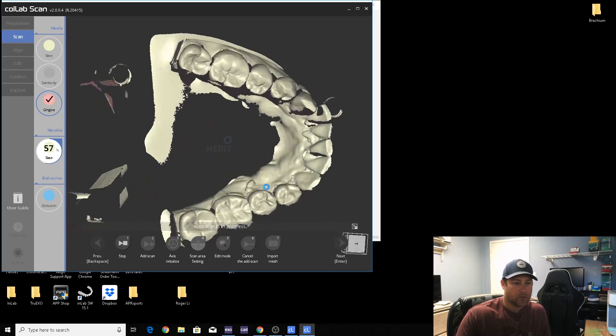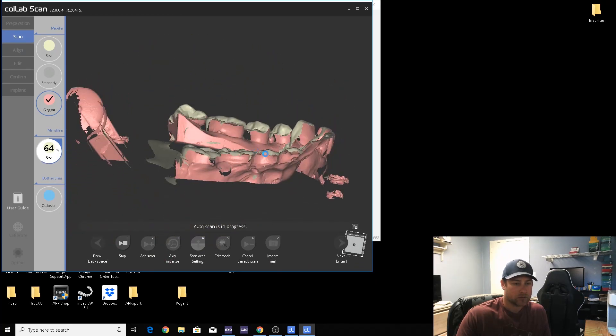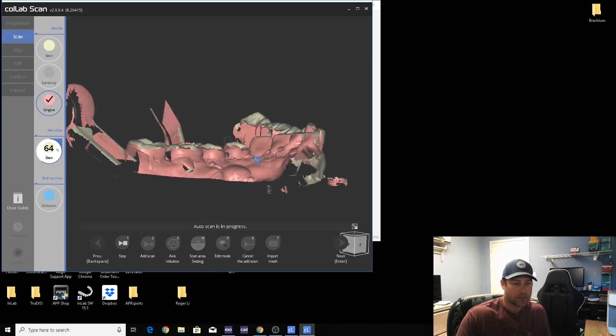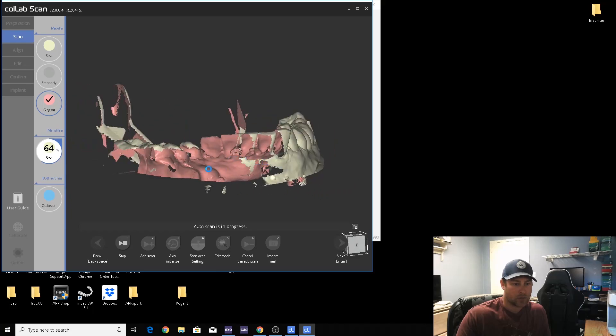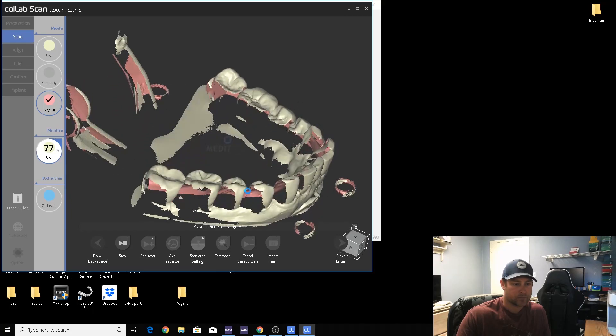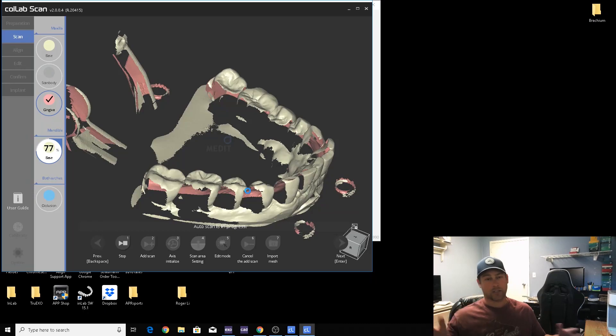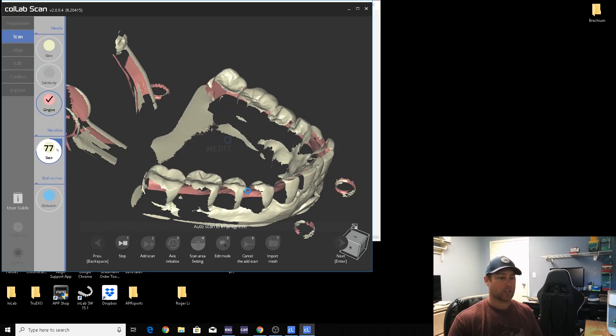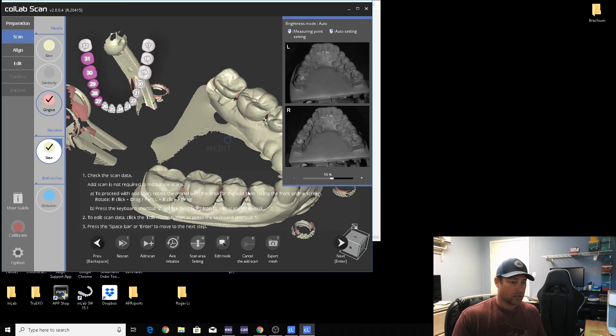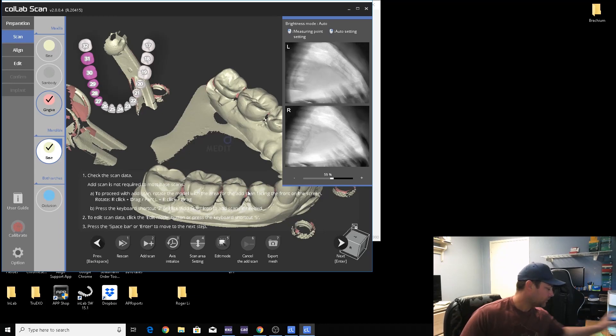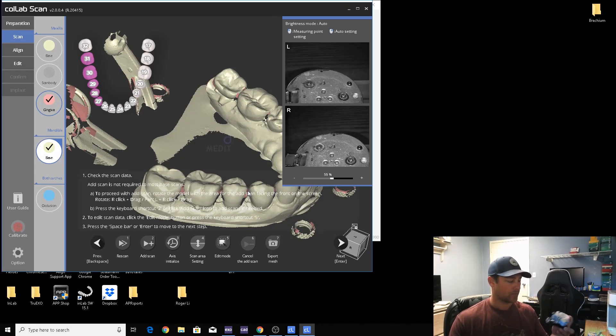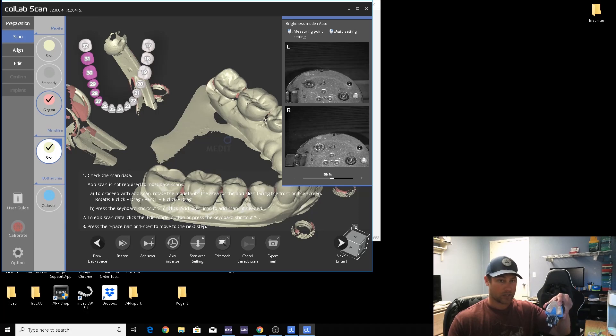All right, switching to the opposing. And while that's scanning, go ahead and you could stop it from here. You can add your own scans, it'd probably be faster, but you're doing other things like setting up the next job to scan, then it's not a big deal.